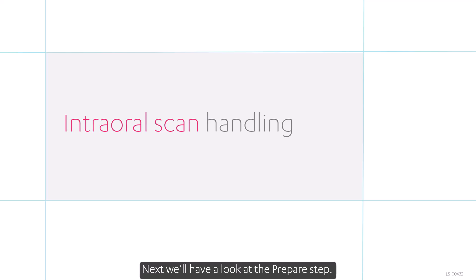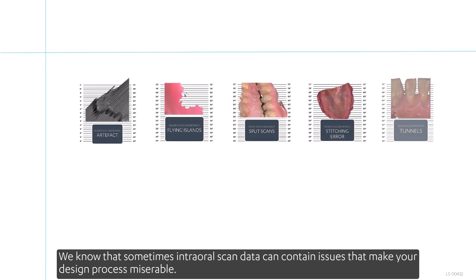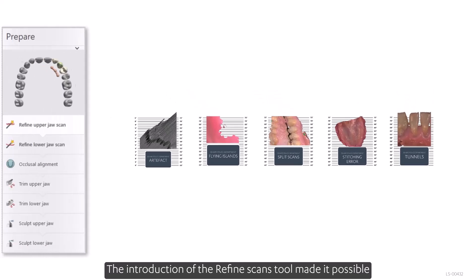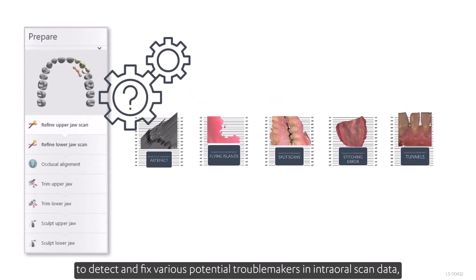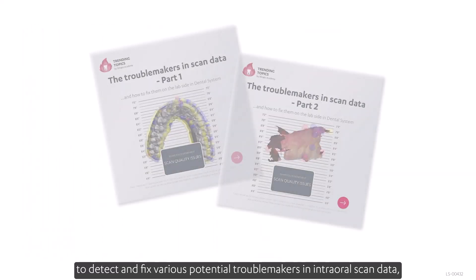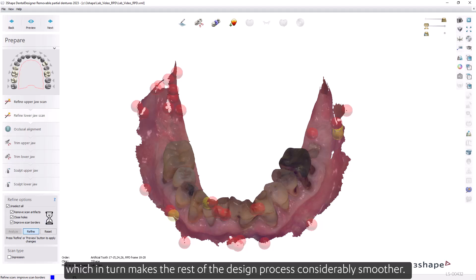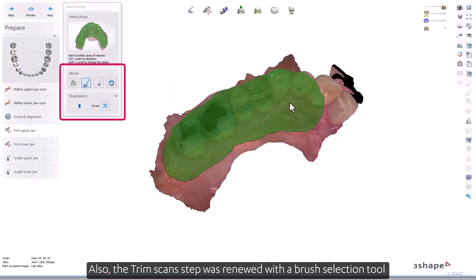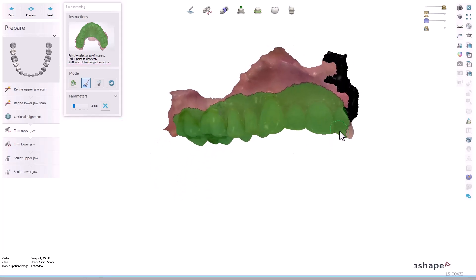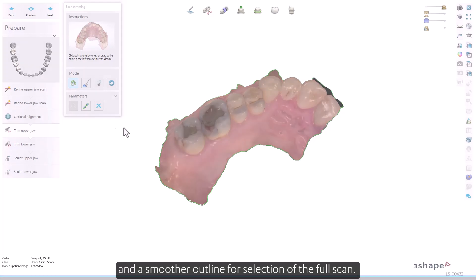In the prepare step, intraoral scan data can sometimes contain issues that make your design process difficult. The introduction of the refined scans tool made it possible to detect and fix various potential troublemakers in intraoral scan data, making the rest of the design process considerably smoother. The trim scan step was also renewed with a brush selection tool and a smoother outline for selection of the full scan.